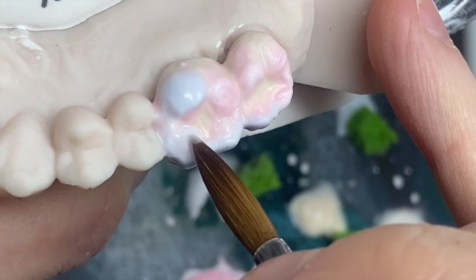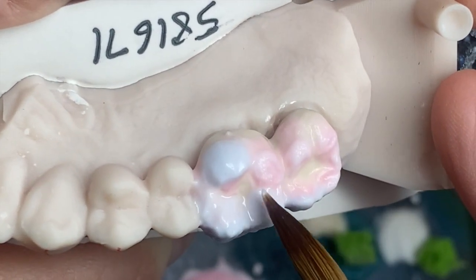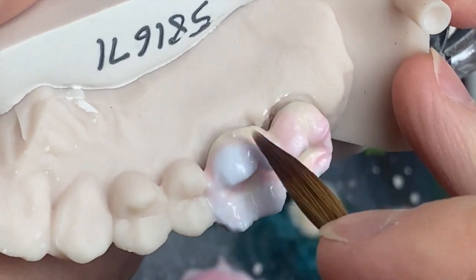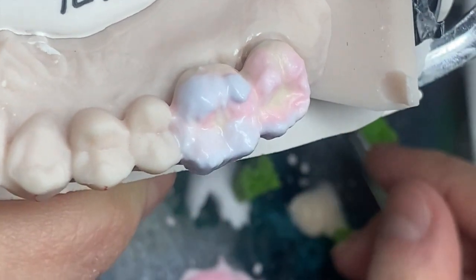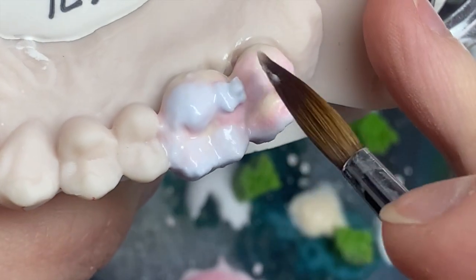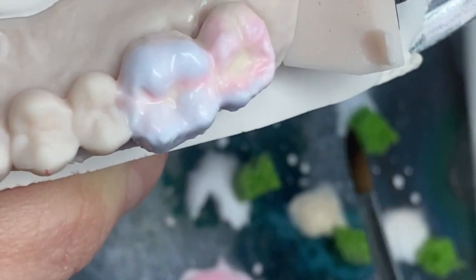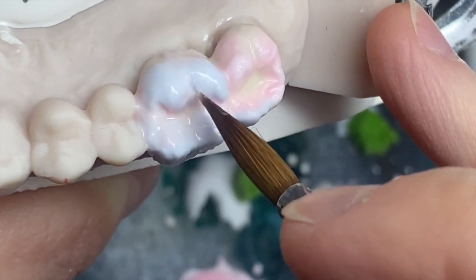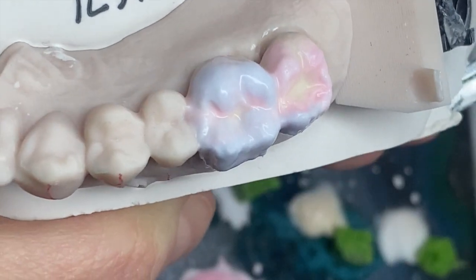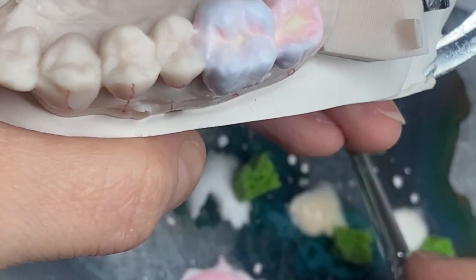I'm not saying they'll always have the same direction or always be in the same row — sometimes a tooth was sticking out or slightly dislocated, and you gotta work with what you have. But if you can provide it, try to provide the same direction and the same height of contour. Height of contour is always in the same place for teeth, unless the tooth has erupted — like when it's much higher than the others because the lower tooth was missing and the patient's tooth erupted. I actually have a tooth like that — a bicuspid on my upper jaw — because I lost the bicuspid on the lower. By the time I had an implant, it had already erupted a lot.